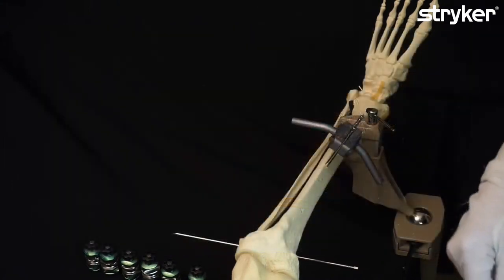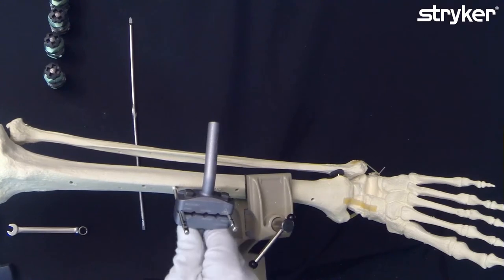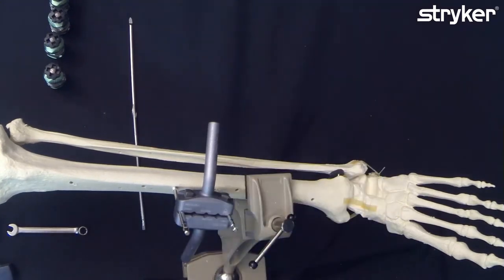For that, we are going to place the standard application in the tibia with two pins, a five-hole pin clamp, and here with the pre-welded outrigger posts.